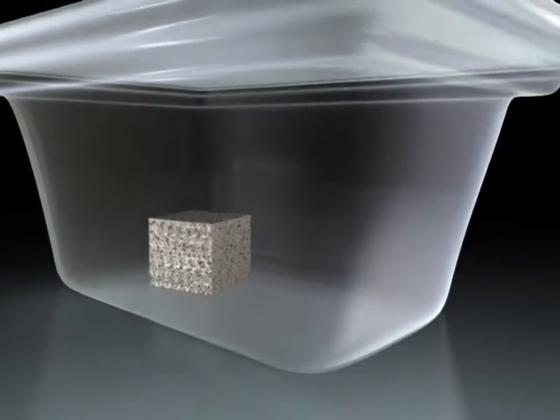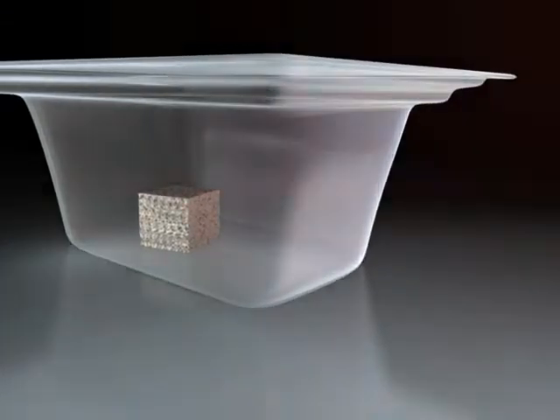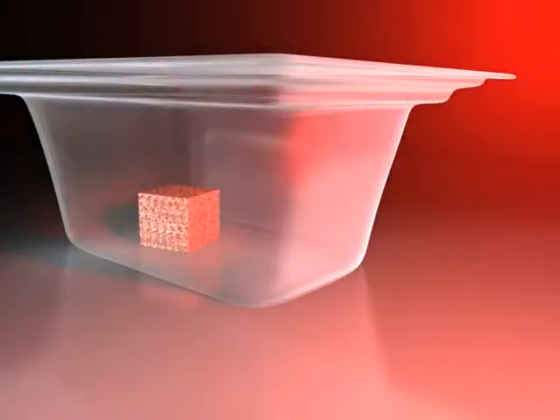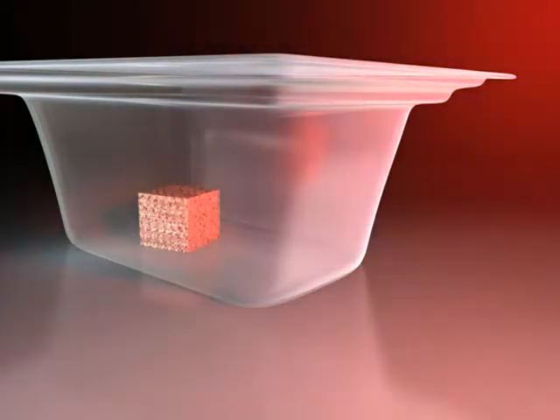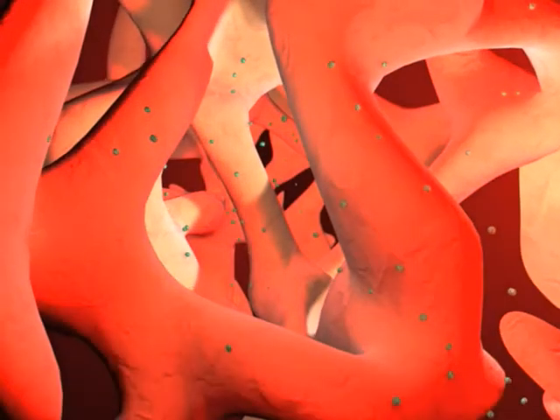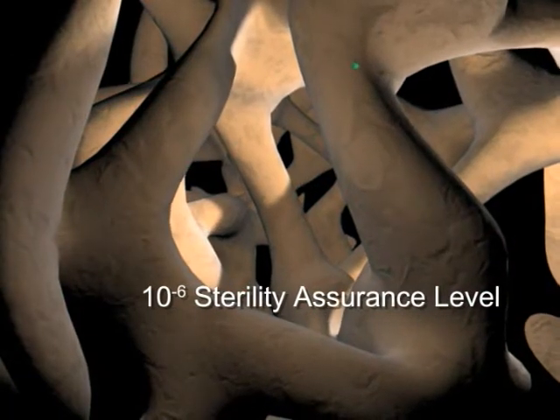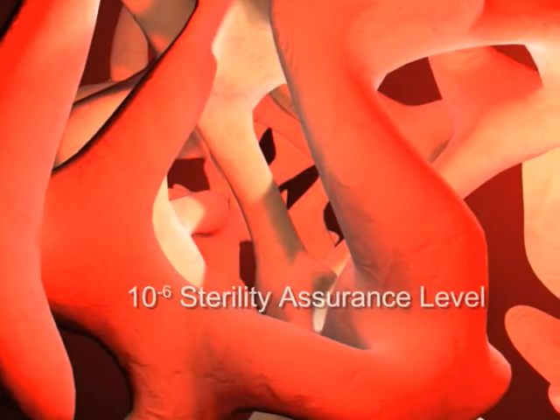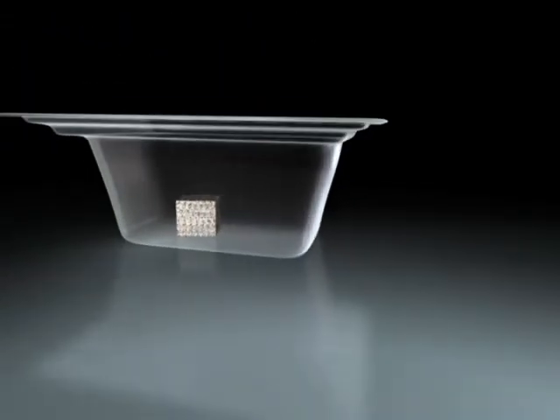The final Allowash XG step is terminal sterilization with a controlled and validated dose of gamma irradiation administered at low temperature after the allograft bioimplant is packaged. LifeNet Health allograft bioimplants reach a sterility assurance level of 10 to the negative 6 without compromising biomechanical or biochemical properties for their intended applications.